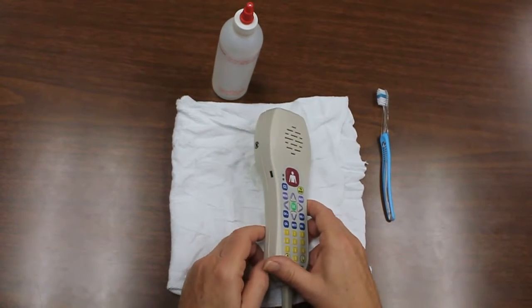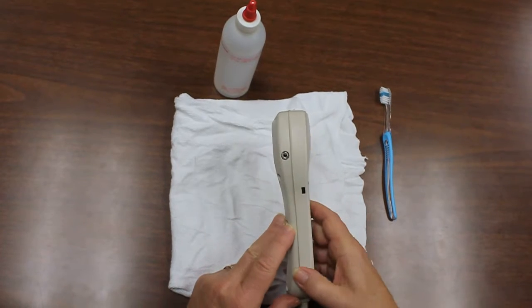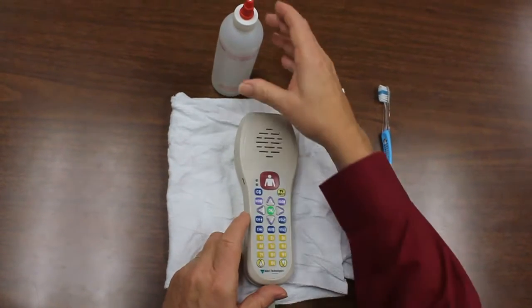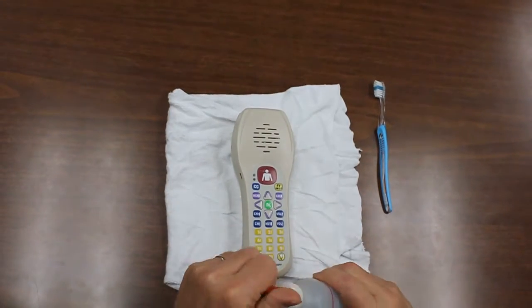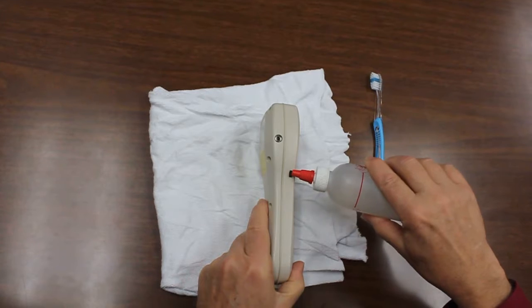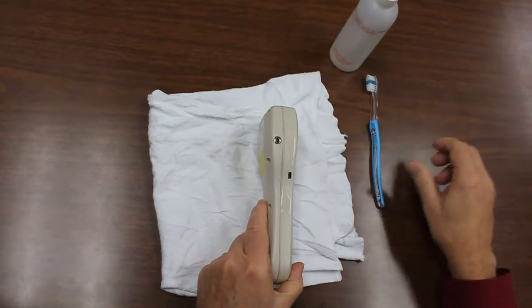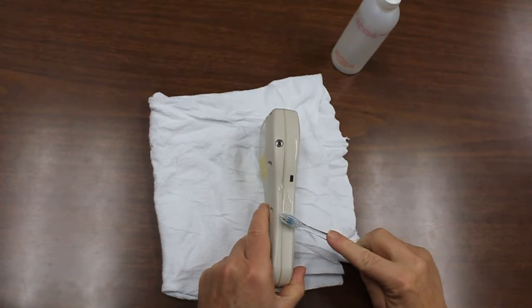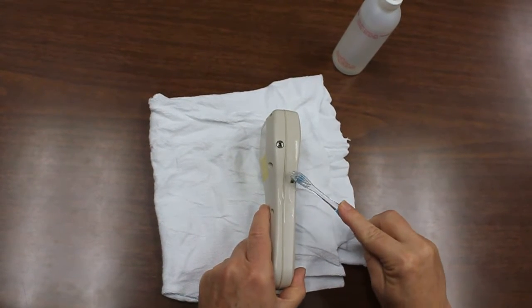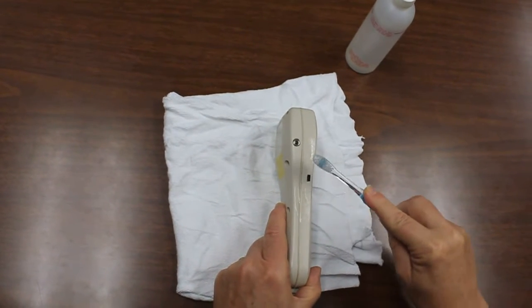It's important that any residue left by your cleaning agent be removed so that the contacts are dry and clean, and the way of doing this is the use of denatured alcohol. You can take some denatured alcohol, squirt it into the locations — these are sealed so you don't have to worry about the material getting inside the pillow speaker — and then take a soft brush, like a toothbrush, and go in and make sure that the inside connectors are clean.